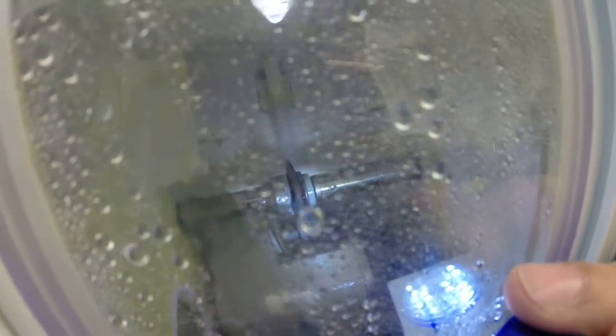Again, the arm moves out into place, and now the safety bevel will be applied to the lens, starting with the front surface, the convex surface, the front surface that sits away from the face, before moving and readjusting itself and putting the safety bevel on the concave rear surface of the lens.